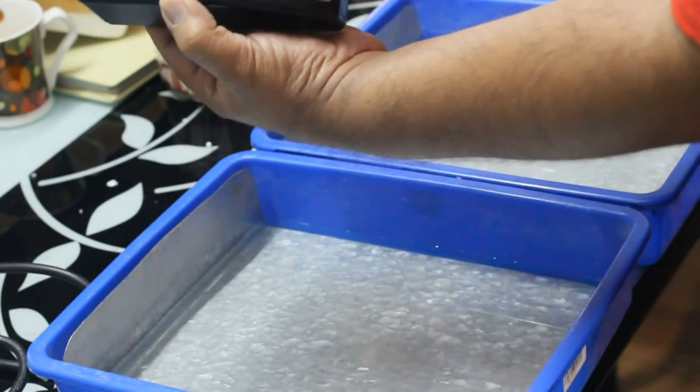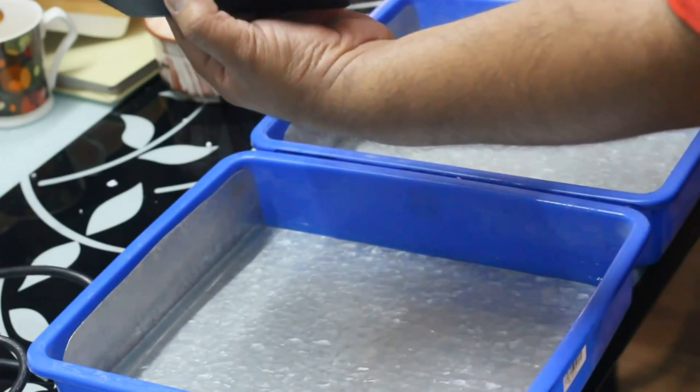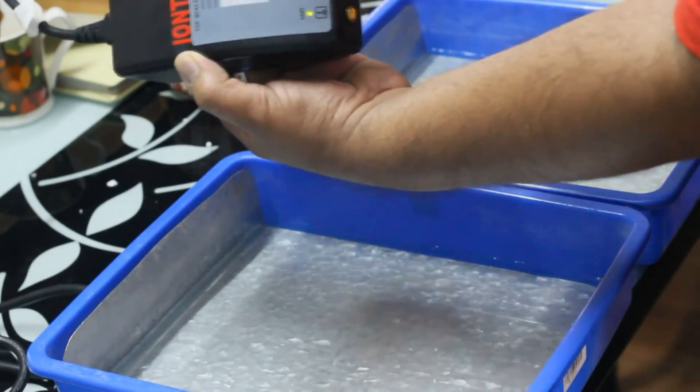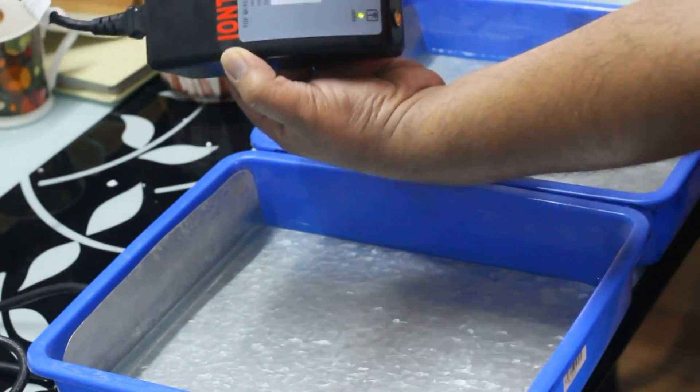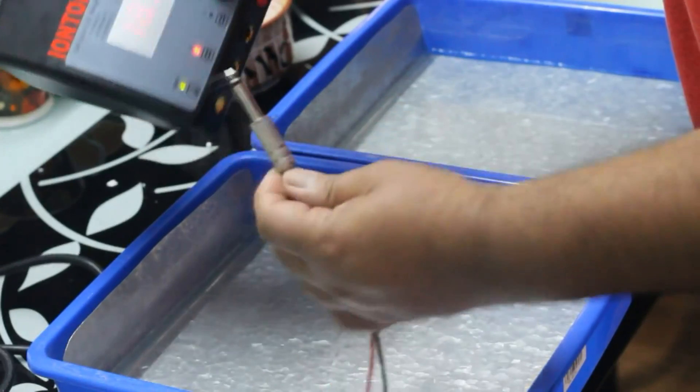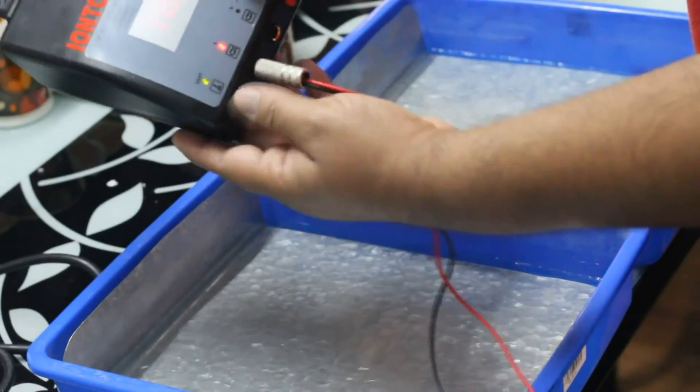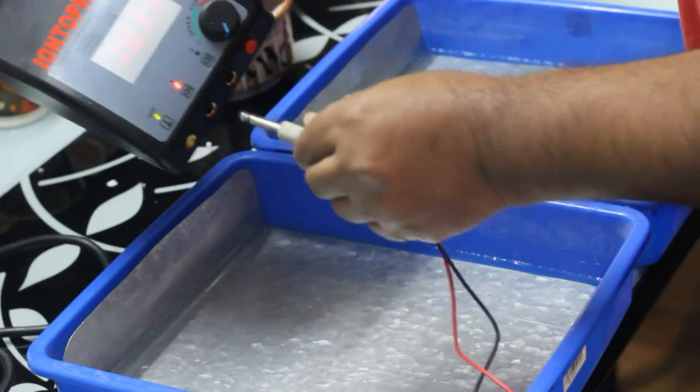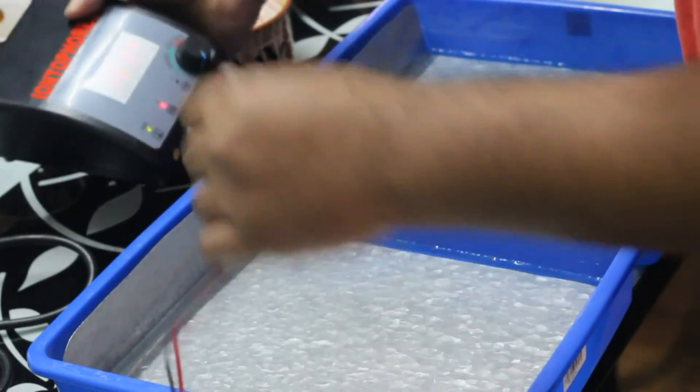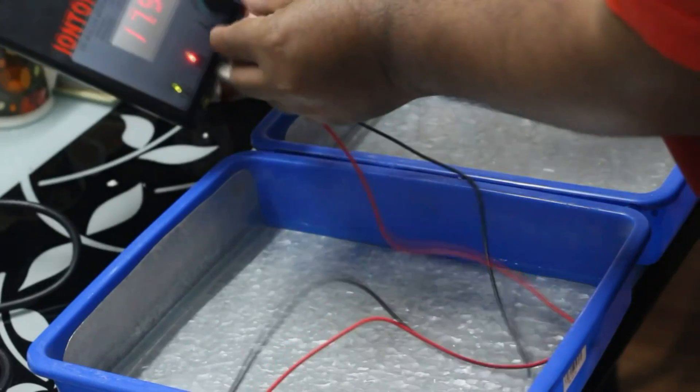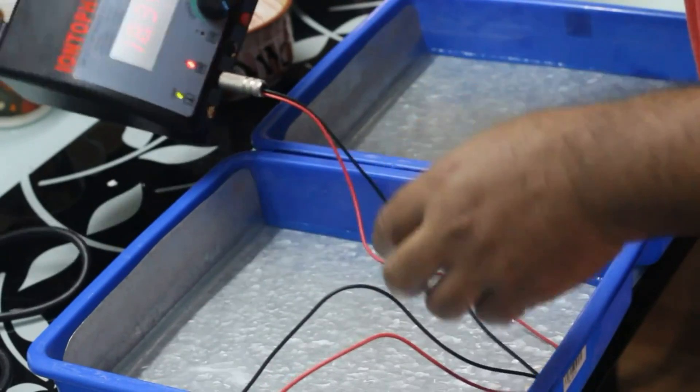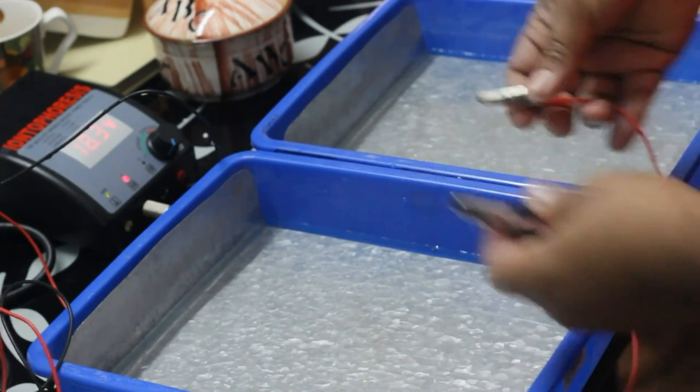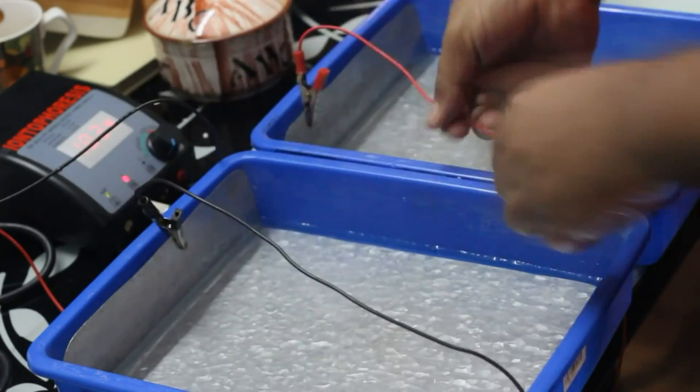Now, about the device. I'm putting a plug. You know, 1.5 is the minimum and 18.5 is the maximum intensity. 18.3, as you can see on the display. Both S and L are the same outlets. The red button indicates which outlet can be opened by increasing the intensity of the button. Once you increase the intensity, you will come to know which outlet you have to use. I'm right now putting it in L. L and S again are the same outlets. Red button is to change this outlet. If it is S or L, it's your choice. Whatever you want to put, you can put. But the indication will show where to put.